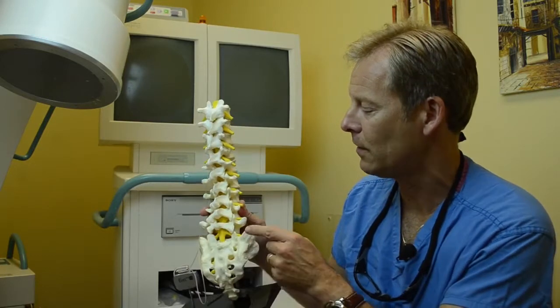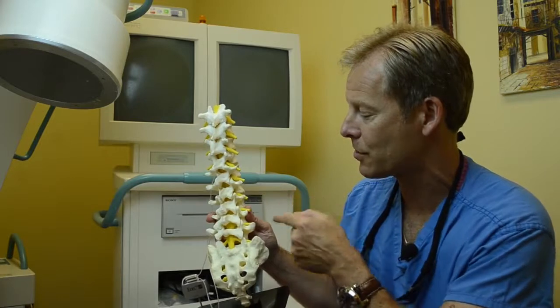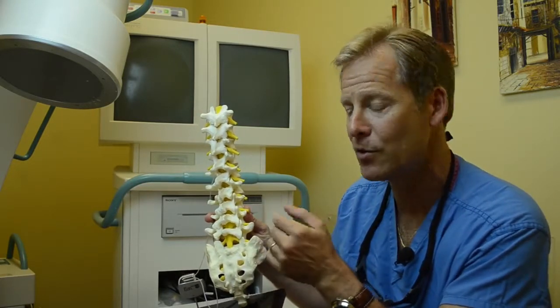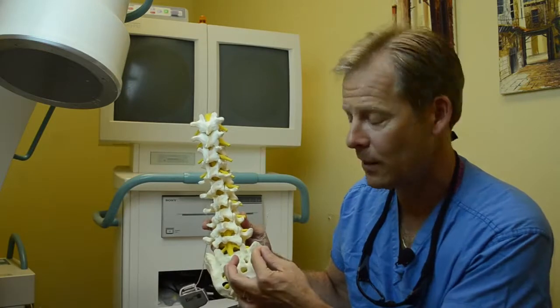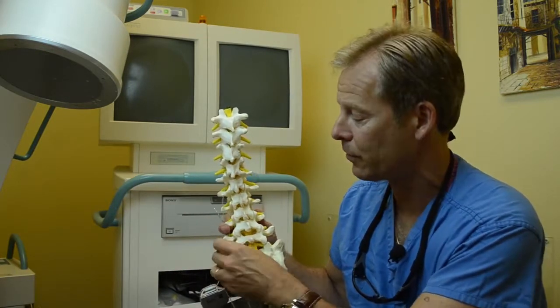So you would see an anesthesiologist or pain physician, and we would draw a box around the discomfort. Again, we're using back pain as an example, but it can be used for others. The leads are then placed underneath the skin, usually parallel depending on which way the pain is, and then the leads come outside the skin for the trial.